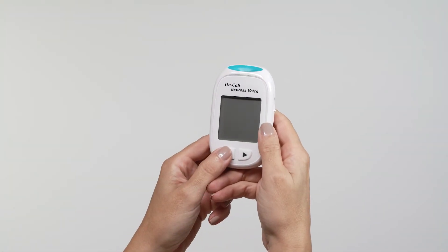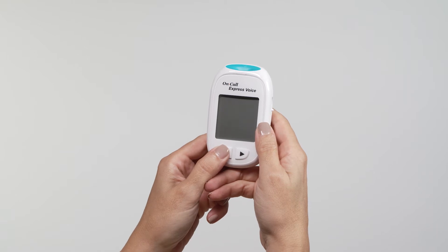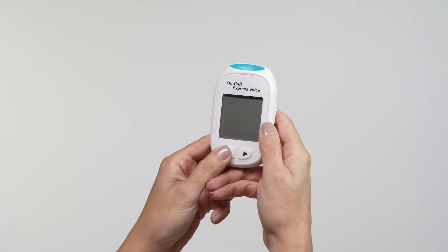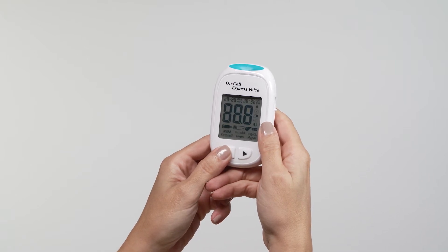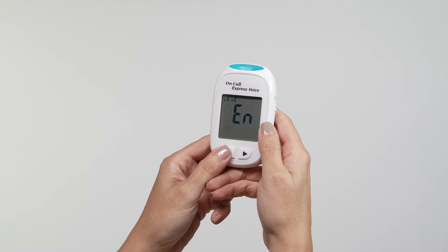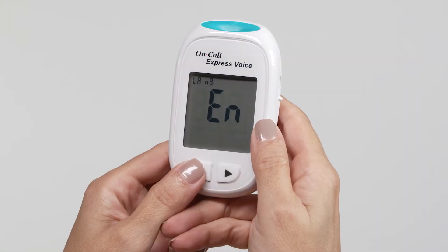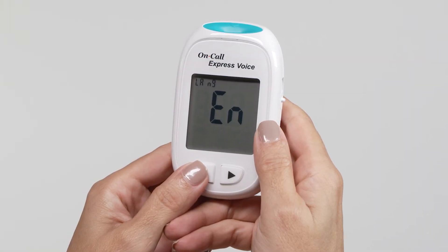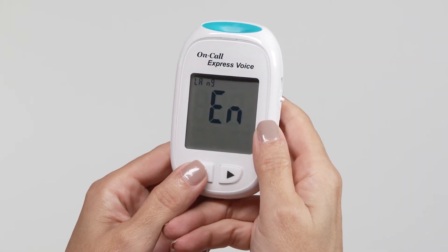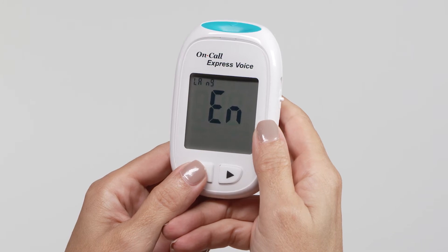Before using your meter for the first time, you will need to adjust the settings. The meter will automatically enter the setup mode when turned on for the first time. After the meter has entered the setup mode, the meter will say Language Settings while displaying EN.